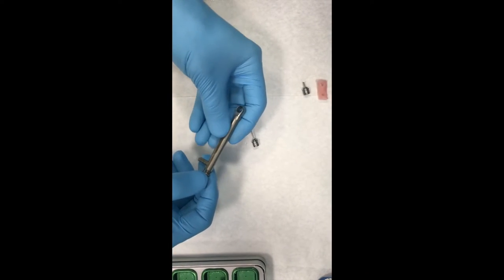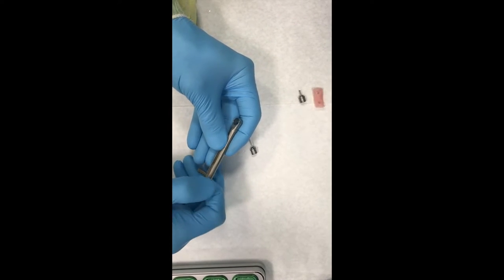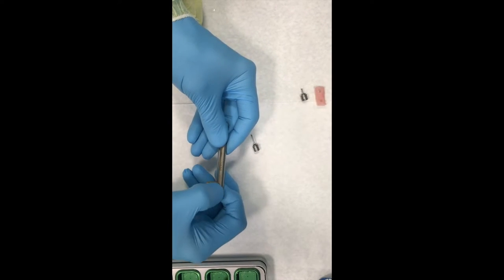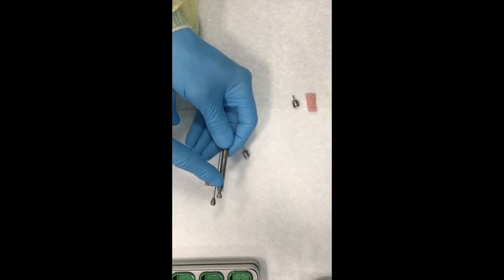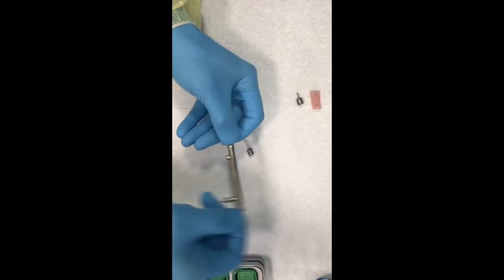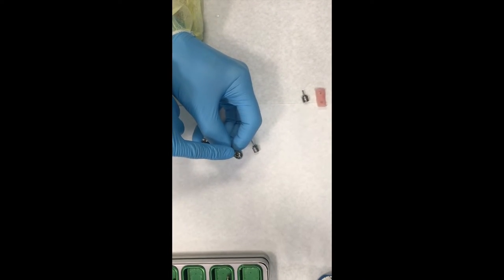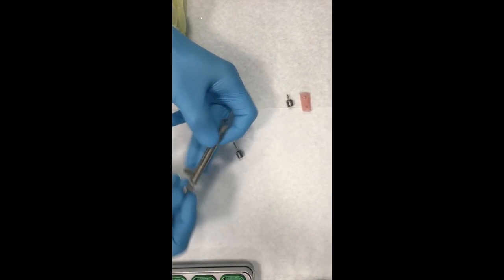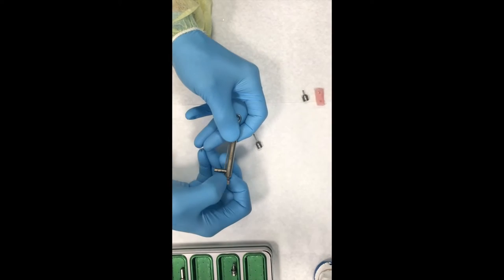So we'll go ahead and insert it, and you'll be thinking, which way do I put the little portion here, the little arrow? Well, since we're going to be tightening, let's go ahead and tighten this. And by the way, this little area here is frequently not tightened all the way. A lot of people try to use this. They don't have it tightened all the way, and guess what happens? Nothing. Because you're not able to engage because the little tooth that comes out through this little tube here is not present. So there's nothing to engage. So that last little half a millimeter or three quarters a millimeter is really important. So you really have to tighten it all the way down.